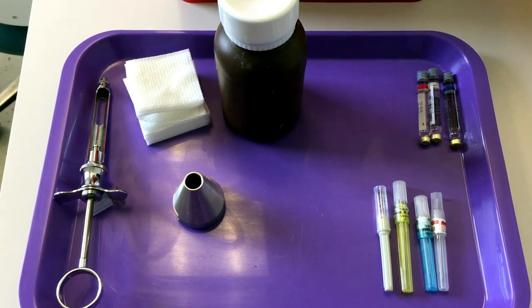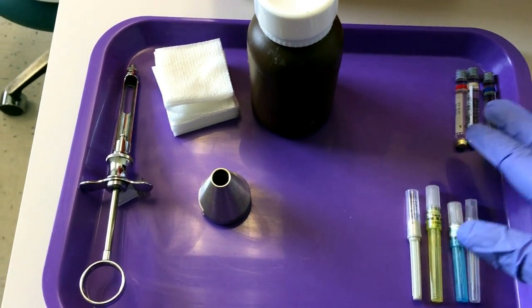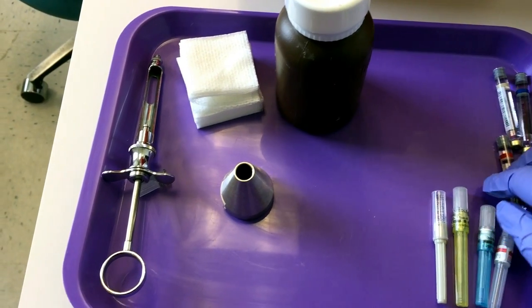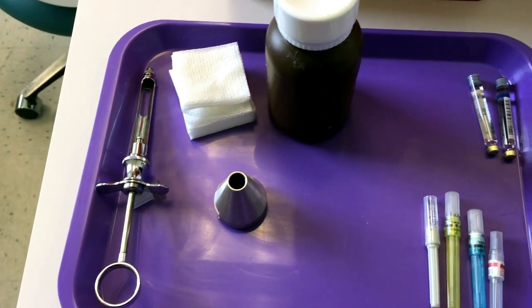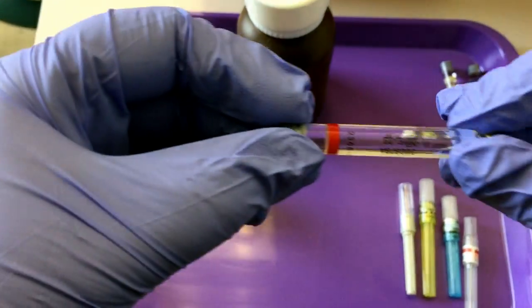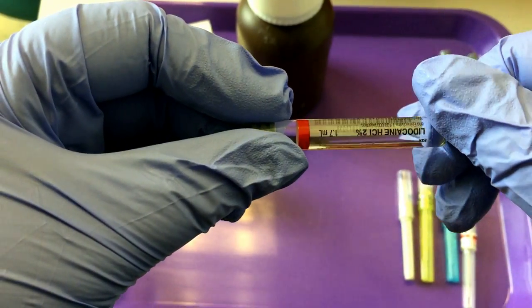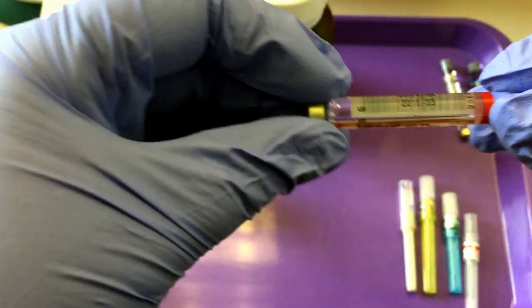The carpule has your anesthetic. The anesthetic is what is used to numb your patient. There are different varieties to choose from. You would assemble what the doctor requests.